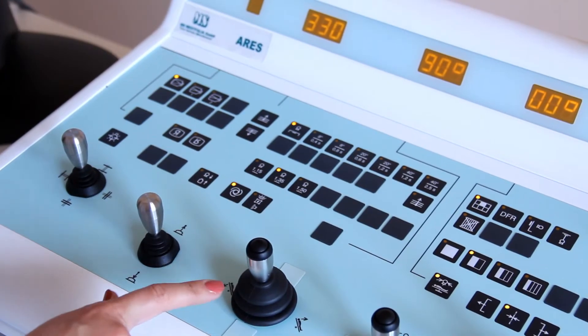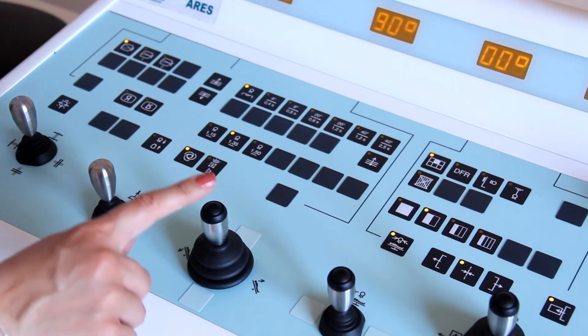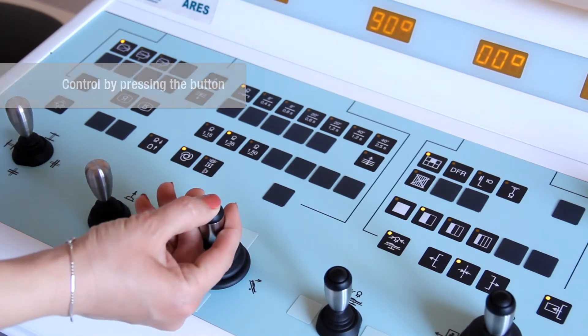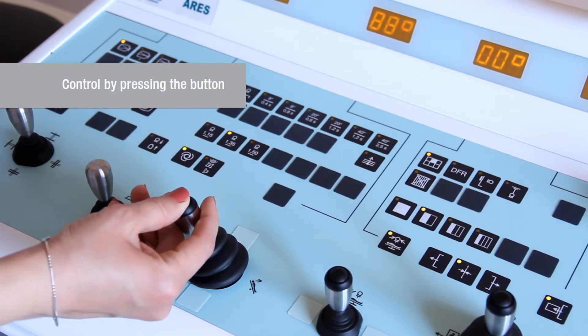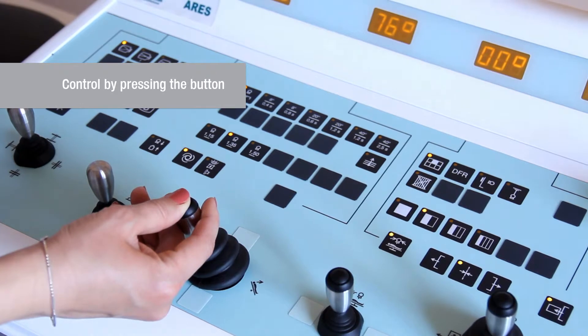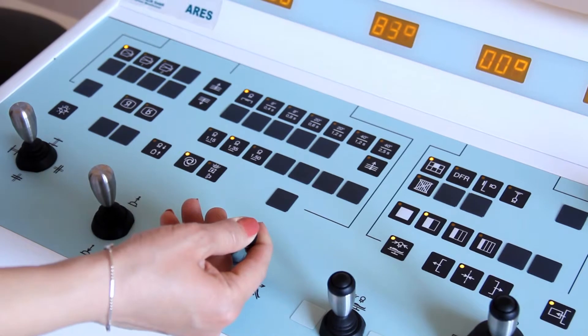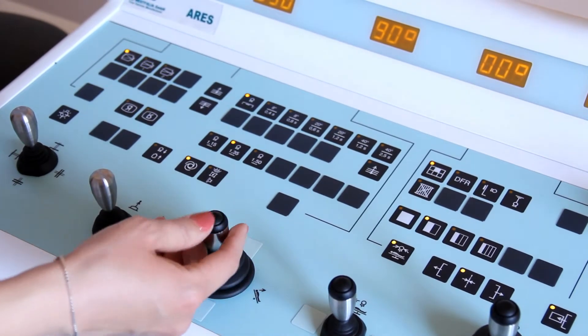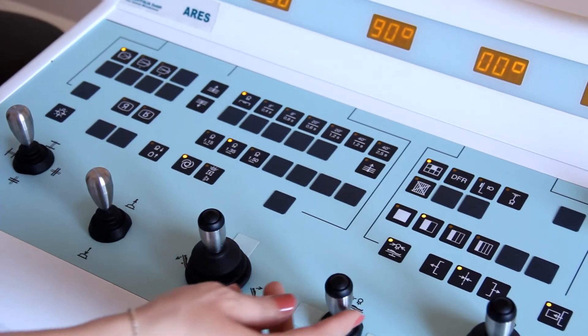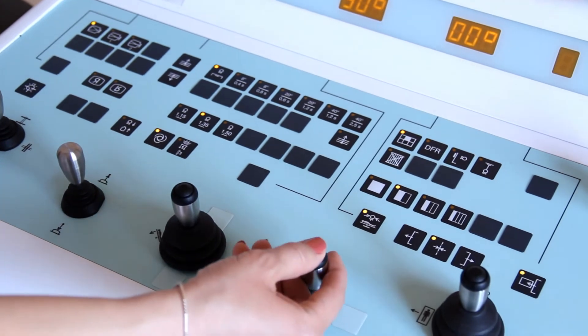Joystick to control tabletop tilting, the tilting angle is displayed on the panel. Joystick to control X-ray tube tilting, the tilting angle is displayed on the panel.